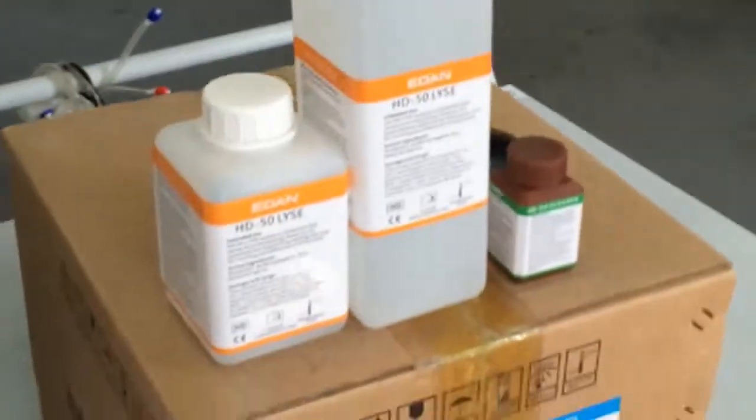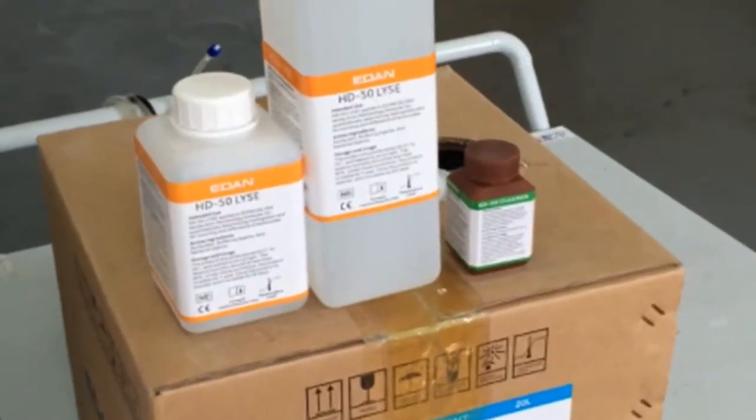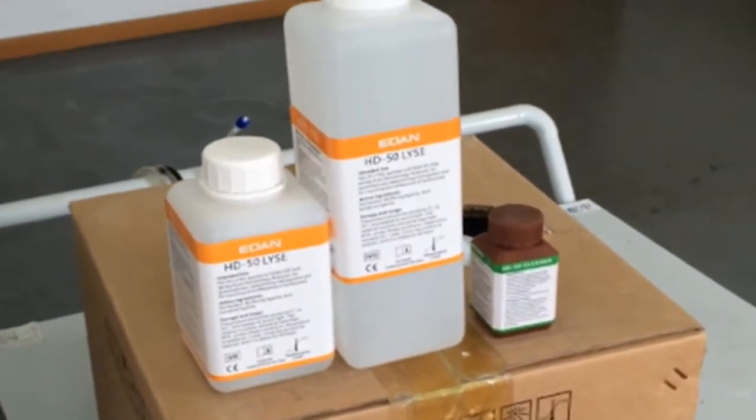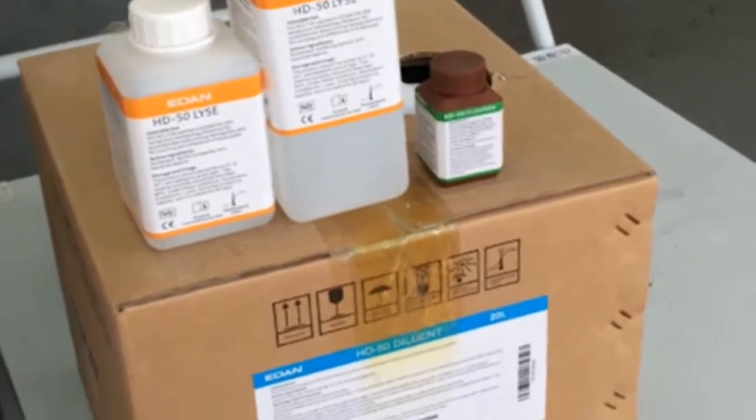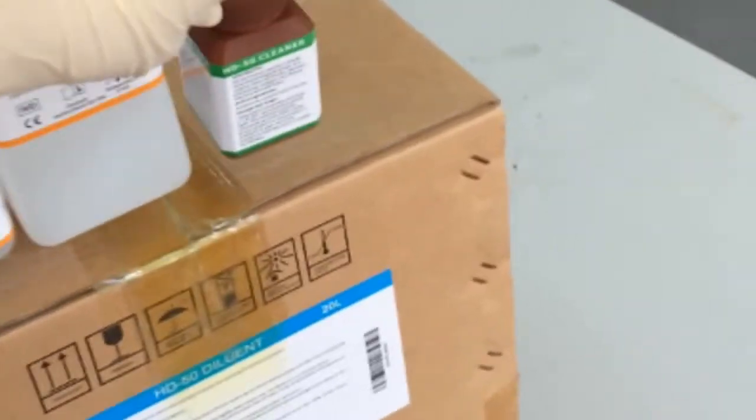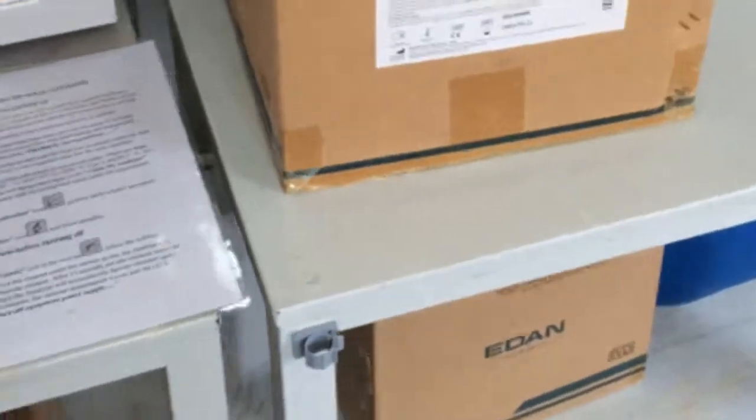All of the reagents need to be stored at room temperature and the shelf life is one year from the manufacturing date. After it's opened, for the cleanser, it has one month shelf life, and for lyse and diluent, we can use it for two months.